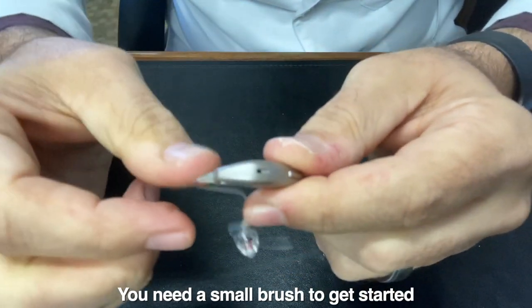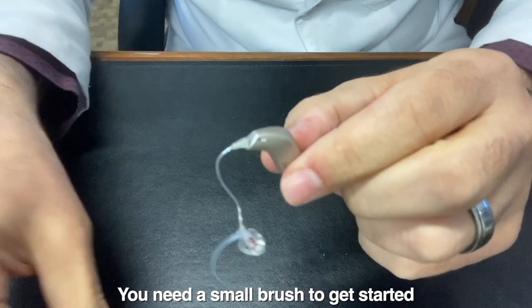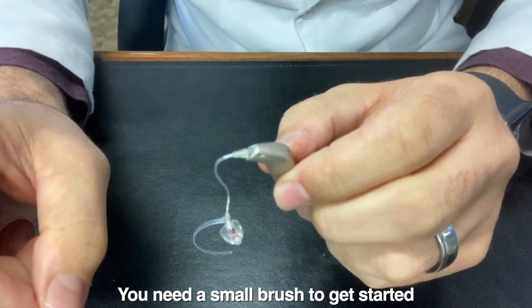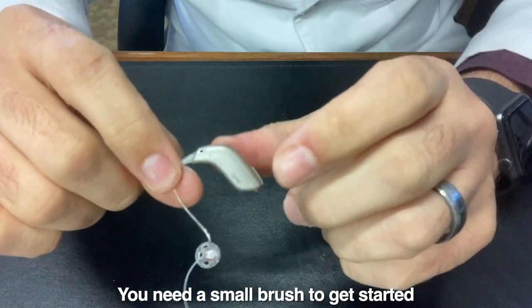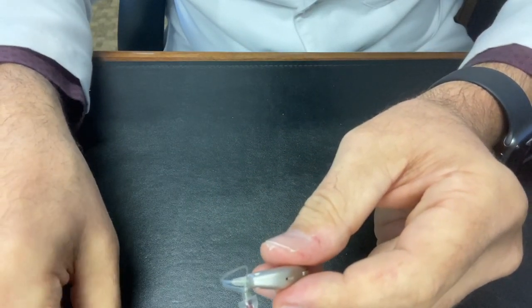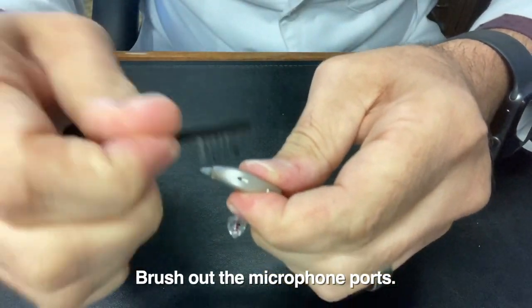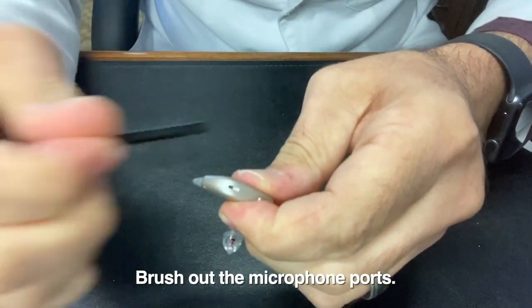Now, if you have a little brush that your device came with, you can use that. If not, just a toothbrush that you designate specifically for your devices is just fine, and in some cases it works much better. You can just brush these little microphone ports a little bit.